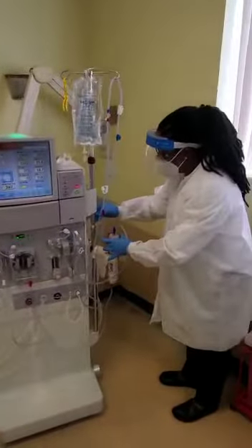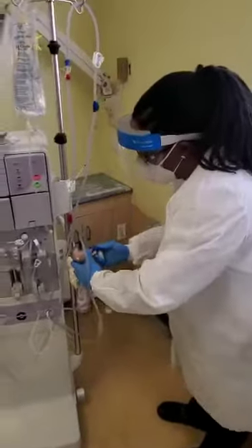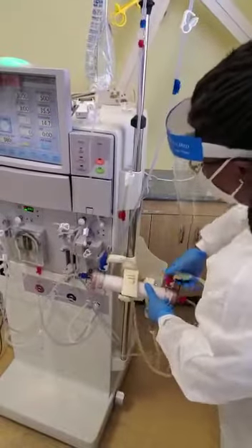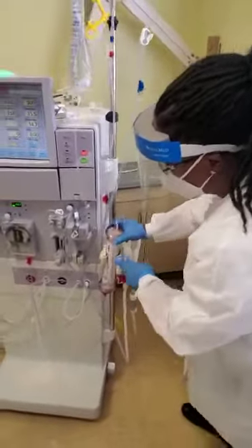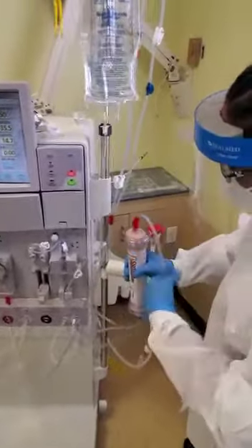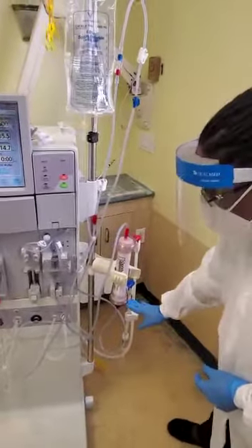Now I need to connect my dialysate. It's color-coded — blue to blue, red to red. This is the prime position where the dialyser is upside down. This is the upright position. When you're going to put your patient on the machine, you want your dialyser arterial end up, venous end down.